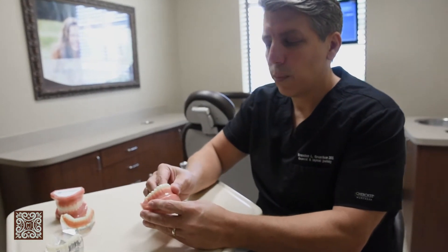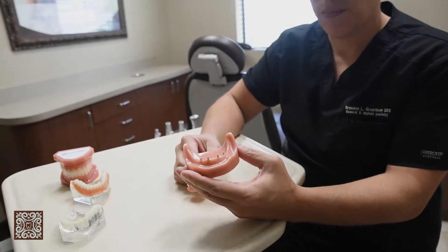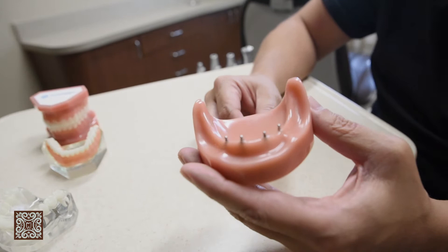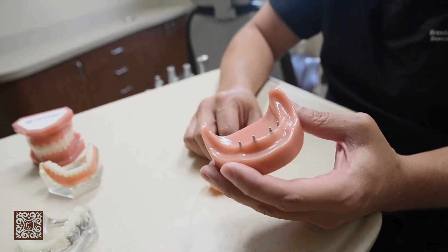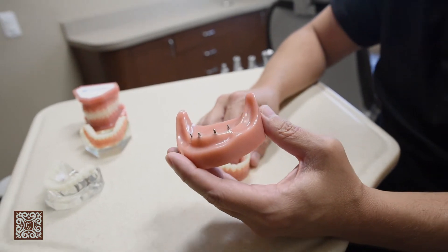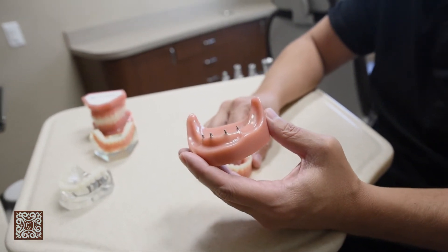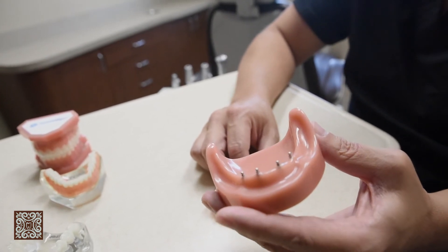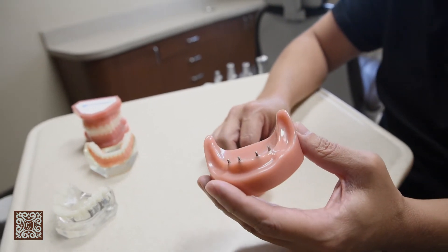Here's a model that shows an example of mini implants. These implants are smaller and less surgical in nature. They're less expensive. These implants are a great option when there's little bone left, because they don't require the amount of bone that conventional implants do. So if you've been edentulous, or without teeth, for many years, these implants can be a great service.